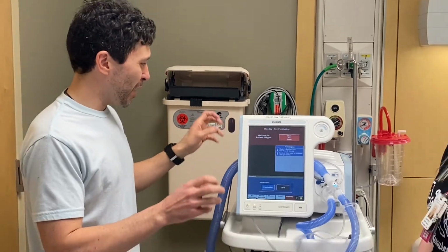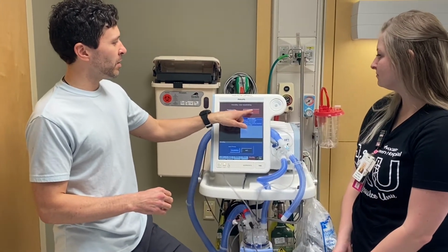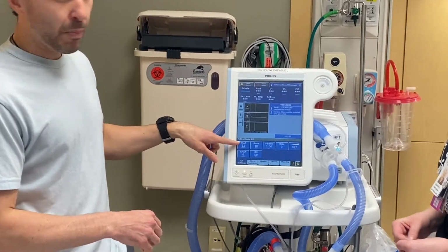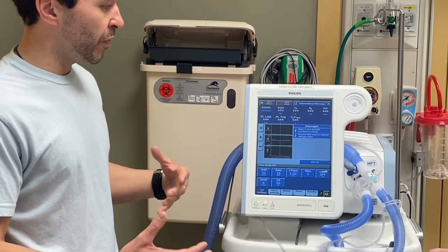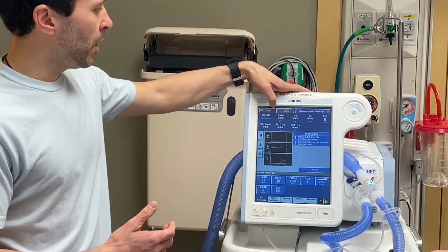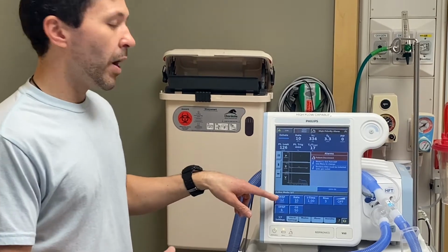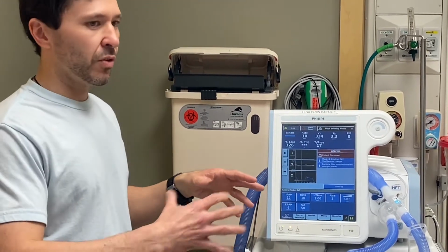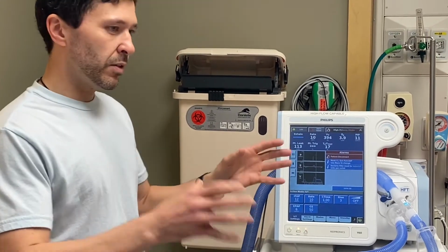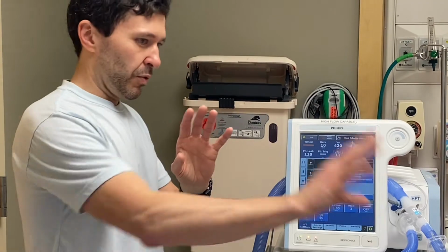So for Bipap or BPAP, when you start your spontaneous time mode, these are your basic settings. Your IPAP, think of that as your inhalation help. If the patient is really struggling to get air in, raise your IPAP number, and you can match their inhalation needs. That is the pressure that, as they breathe in, gives them that extra boost.